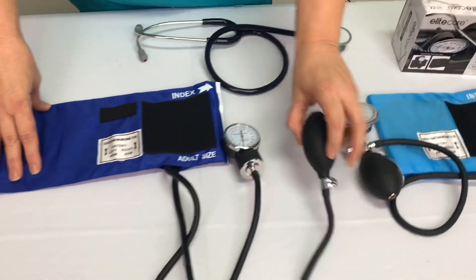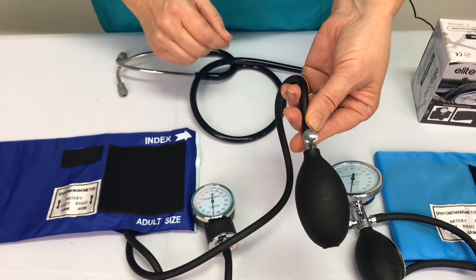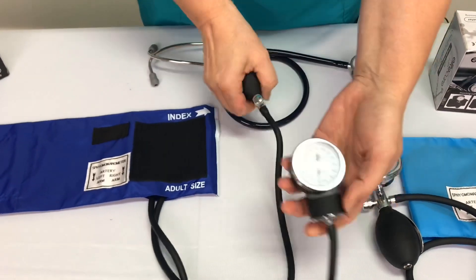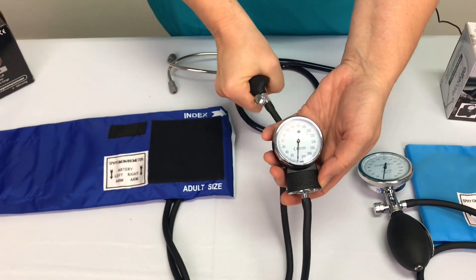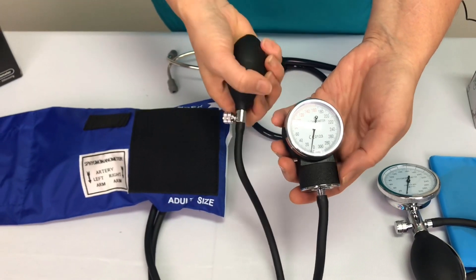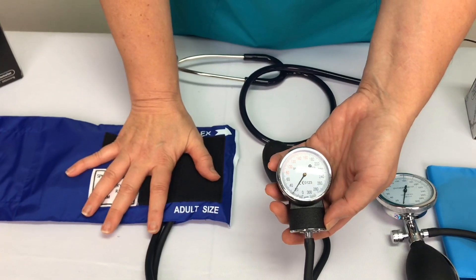There is a bulb and here is a valve — you may have heard the expression 'righty tighty, lefty loosey' and it applies here as well. One thing to note: even if the valve is tightened all the way and you start to pump, the bladder will inflate but nothing happens on the gauge. That's because the cuff hasn't been applied — we need a resisting pressure for the gauge to read. So if you're pumping away and think it's broken, try popping it on somebody and the gauge will work beautifully.